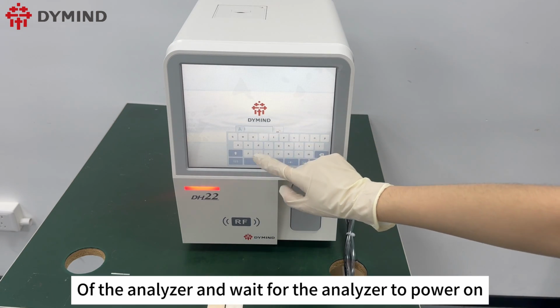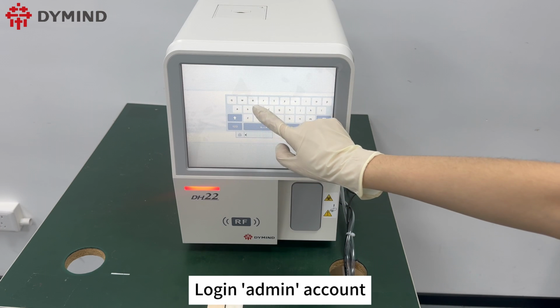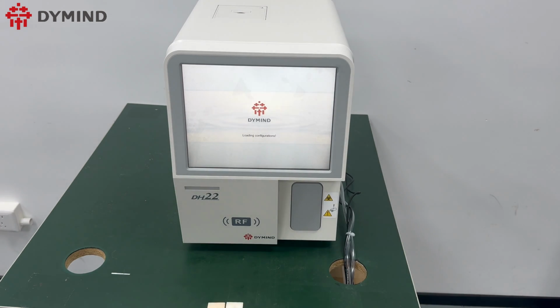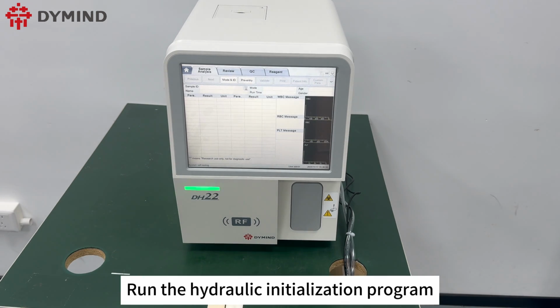Turn on the power of the analyzer and wait for the analyzer to power on. Log in admin account. The password is admin also. After entering the interface, the analyzer will automatically run the hydraulic initialization program.